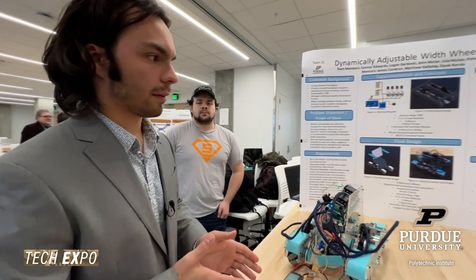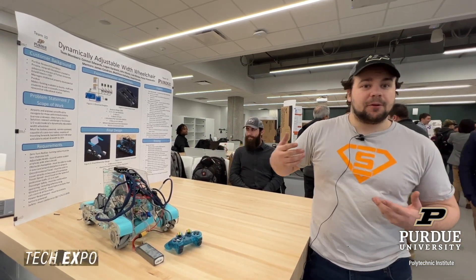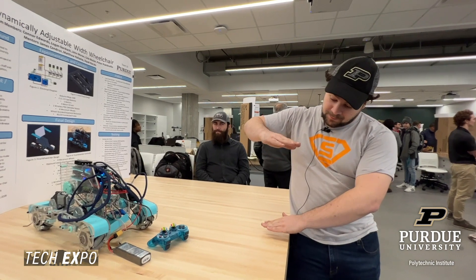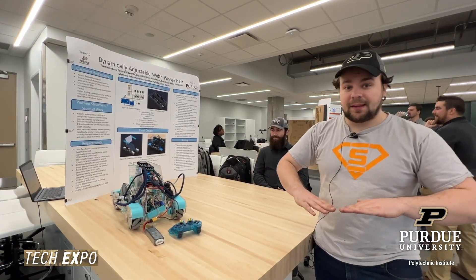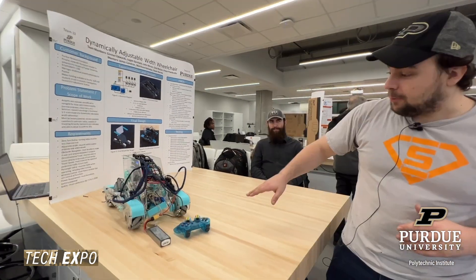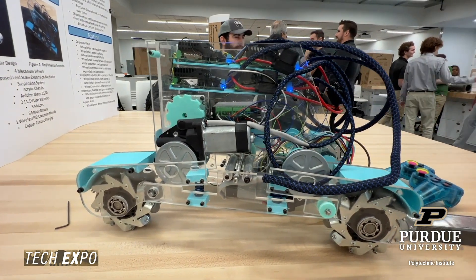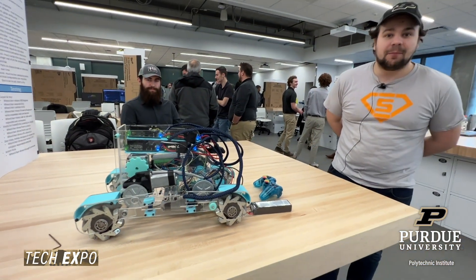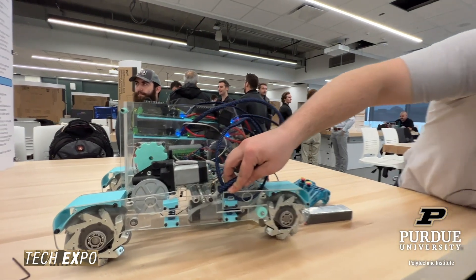The previous team's chassis was very tall — motors mounted vertically with the chassis sitting above them, raising it high off the ground before reaching any frame. We wanted to lower the chassis to improve rigidity, which we accomplished by folding the motors sideways. That also allowed us to add suspension, which helps with the non-circular profile of the Mecanum wheels vibrating while driving. You can see a small spring suspension on each wheel.